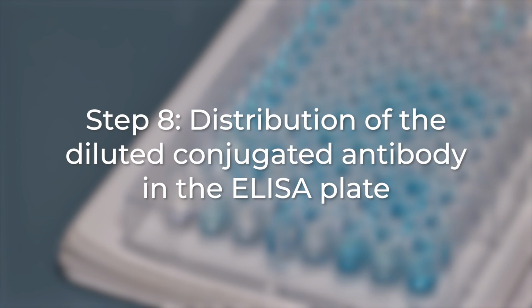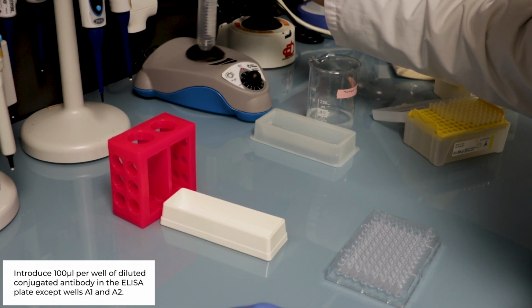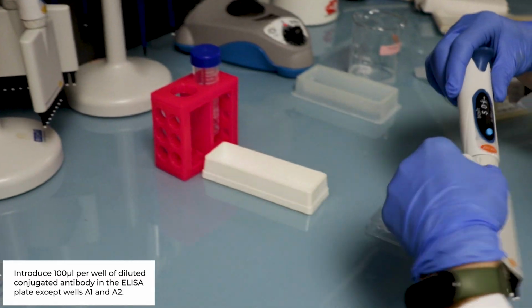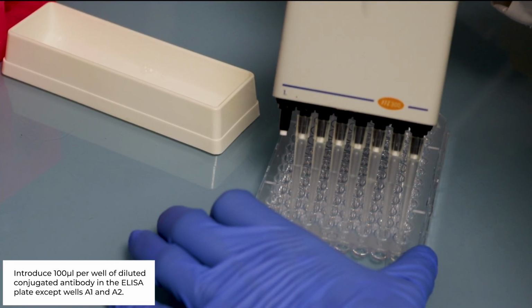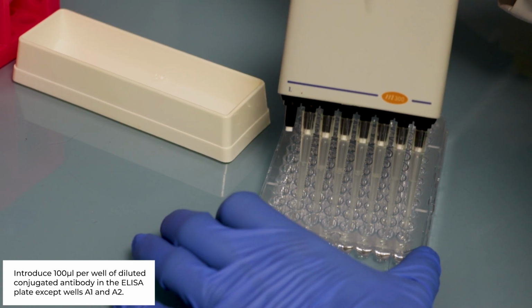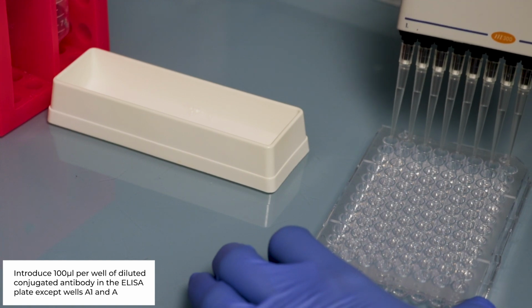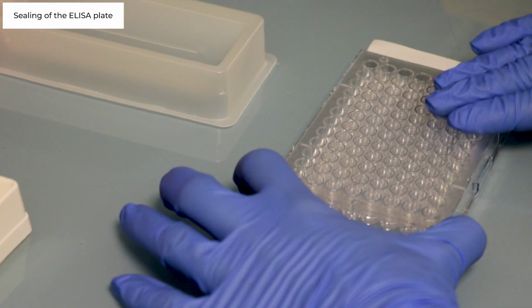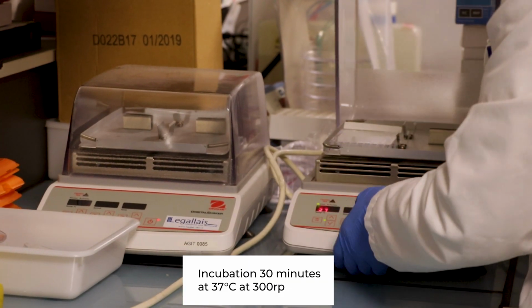Step number 8. Distribution of the diluted conjugated antibody into the ELISA plate. Introduce 100 microliters of diluted conjugated antibody per well in the ELISA plate, at the exception of wells A1 and A2. Sealing of the ELISA plate. Incubation 30 minutes at 37 Celsius degree, 300 rotations per minute.